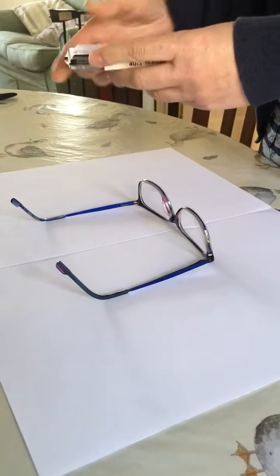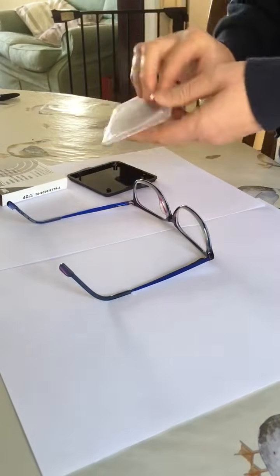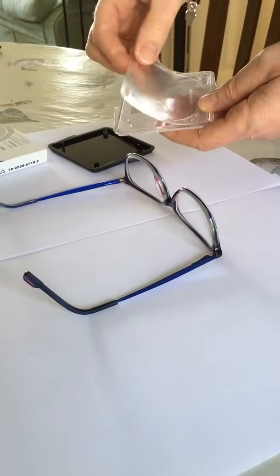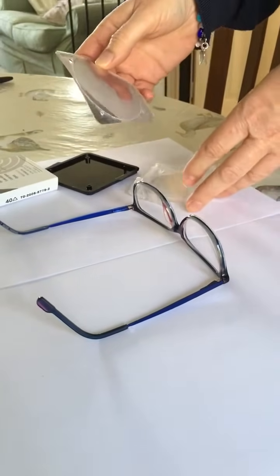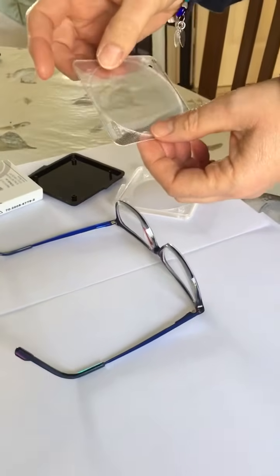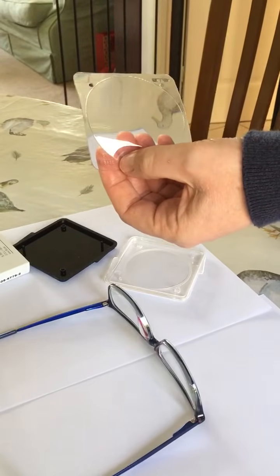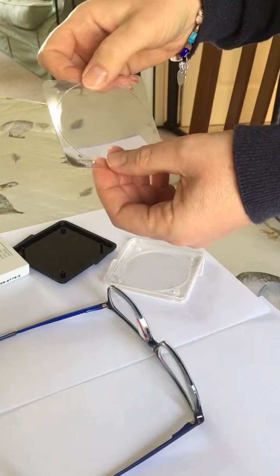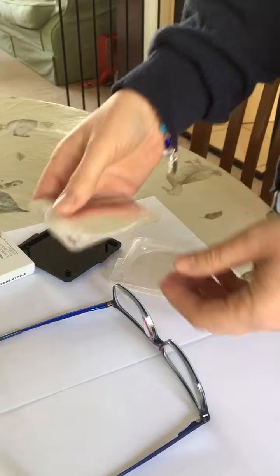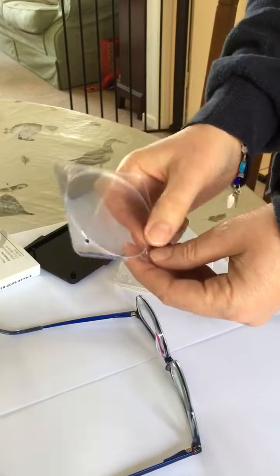Here's a prism — just take it out of the box. It could sometimes be in the lid or sometimes in the bottom. If you look at the prism, it's got an outside rim which you can pop off eventually. But if you look carefully it says 'base' on the prism edge, so that will help you to fit the prism. A prism has to be fitted with the smooth side — not the rough side — down on the glass, and you need to put it so that the base is in a particular direction.